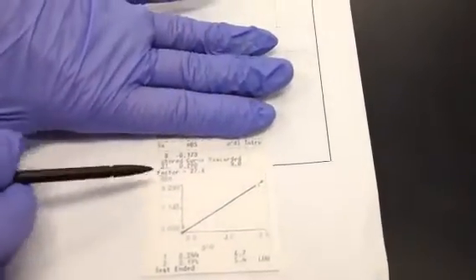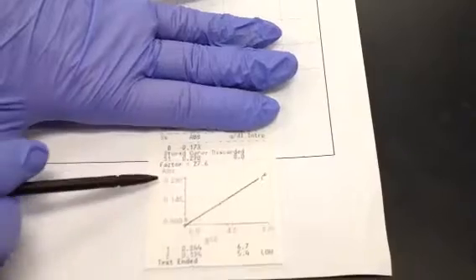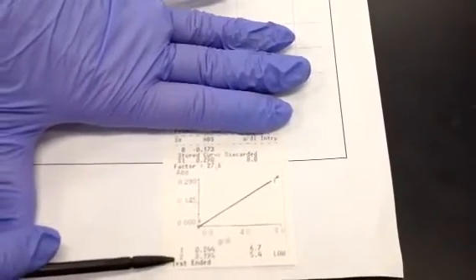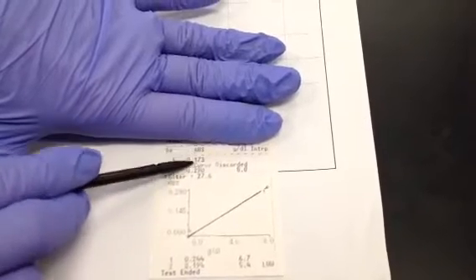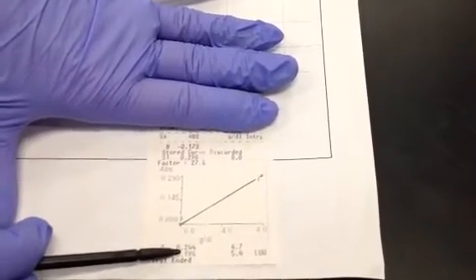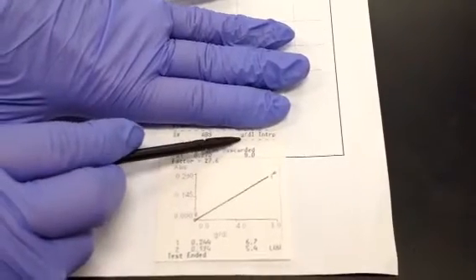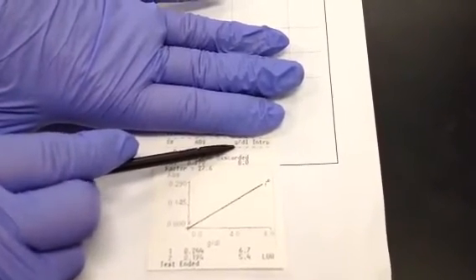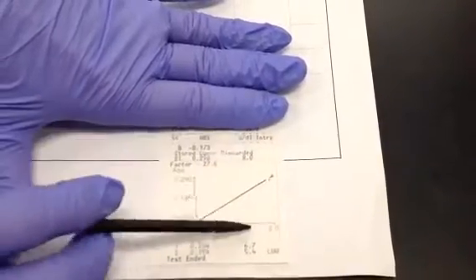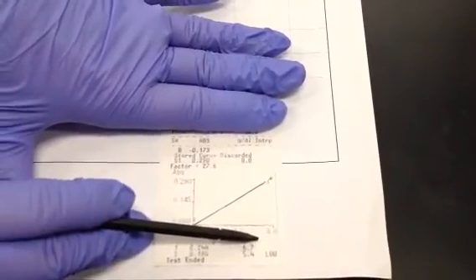And if you use these as headers, I have a sample, number 1, number 2. I have an absorbance reading for each of those. Then in the units of grams per deciliter, I have my final answer, along with maybe a flag or information.